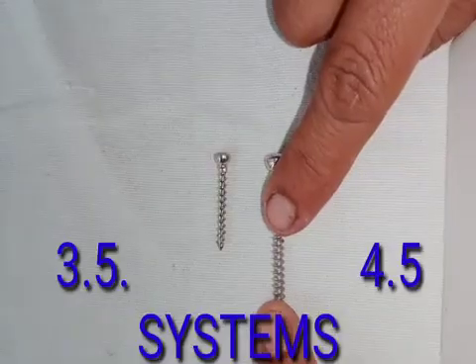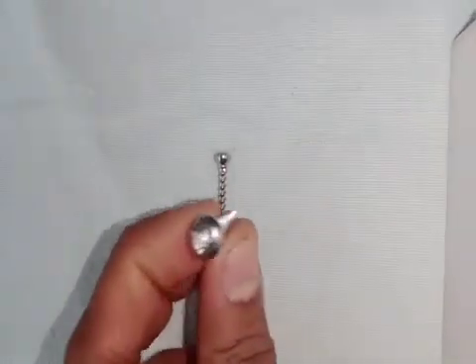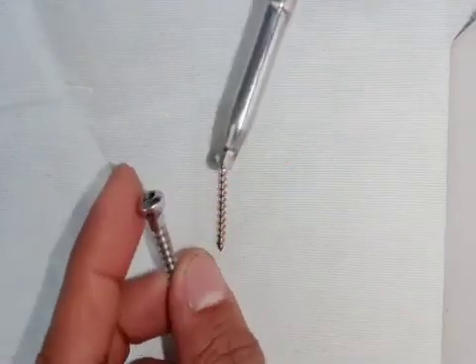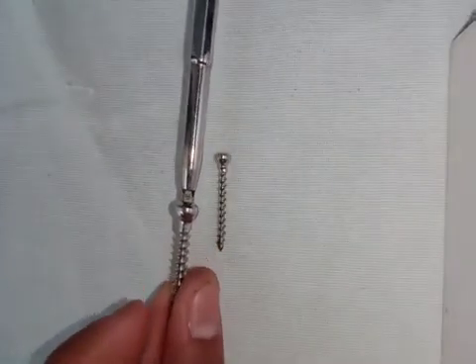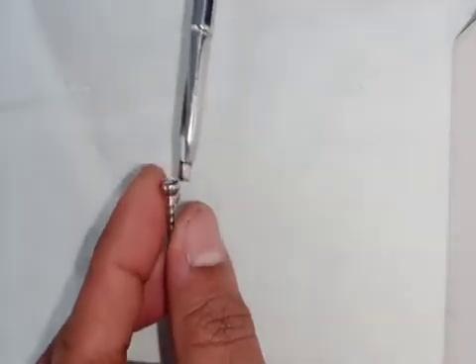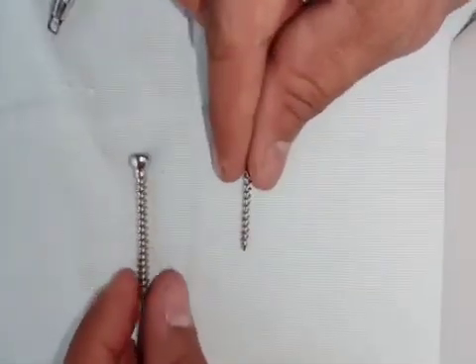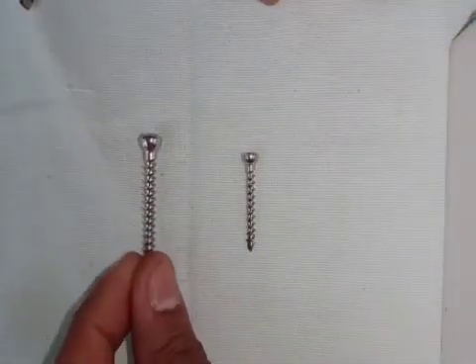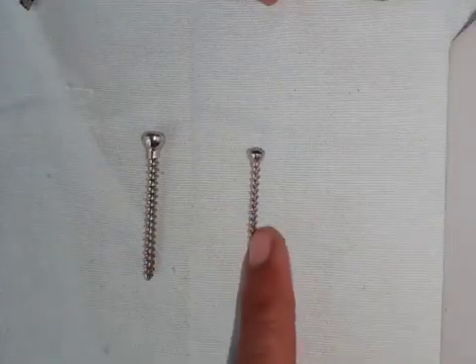There is, however, a main difference between these two screws which both look alike, and that is the size of the head. As you can see, there is a hexagonal head here, and that hexagonal head fits into a hexagonal screwdriver which allows you to turn the screw. On the other hand, this screw also has a hexagonal head but will not fit inside because the size is different. So from these, you can understand that there are two different sizes. The two main sizes we use in orthopedics are the 4.5 system and the 3.5 system.